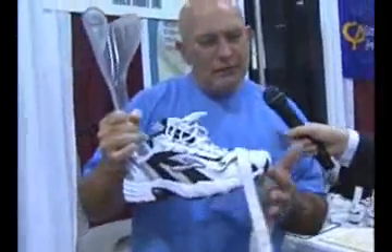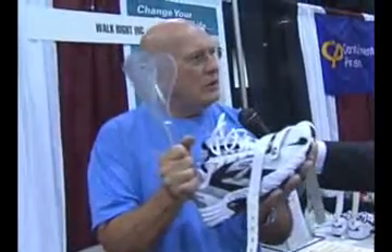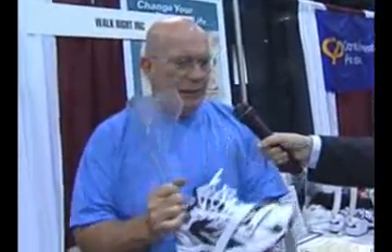You mentioned about going up an incline. When you have foot drop, going up a hill is difficult — you just can't lift your foot up to make the next step. As I mentioned, because the brace lifts the toe up past neutral, when you go up an incline, you actually have a normal gait. You're able to walk onto the ball of your foot going up an incline, rather than having to bring the whole foot up in a flat-foot manner.